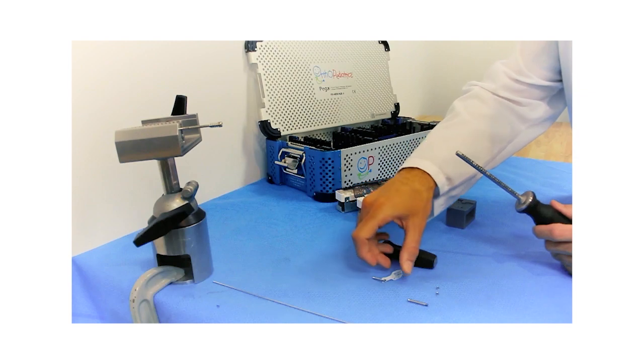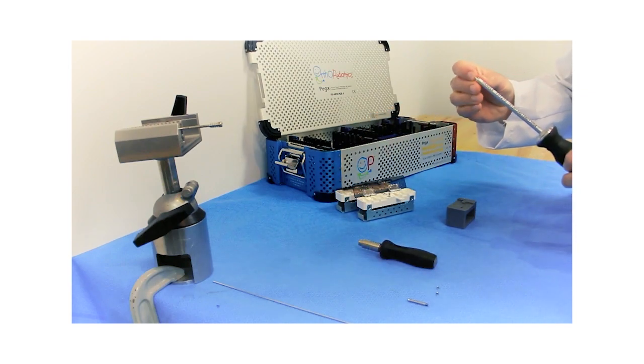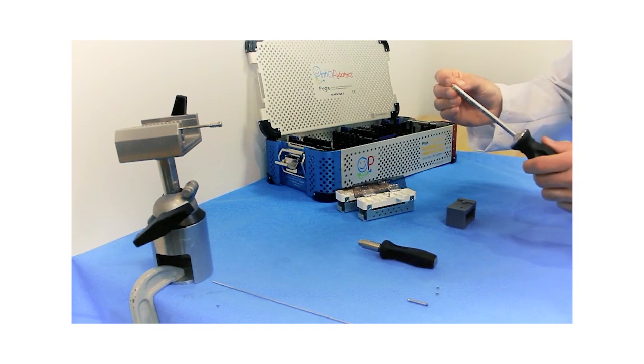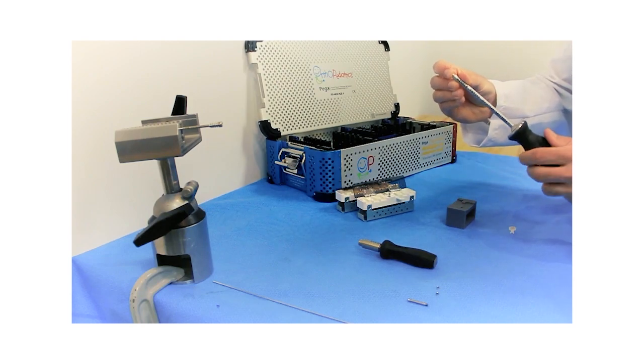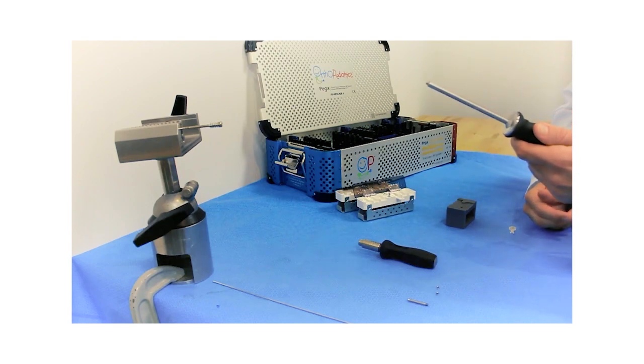For assembly, you can simply take your cartridge out of the caddy, hold it with your fingers, and rotate in a counterclockwise fashion. Once you feel it snug, gently pull on the clip and take away any remaining slack, at which point you're ready to load onto the implant.